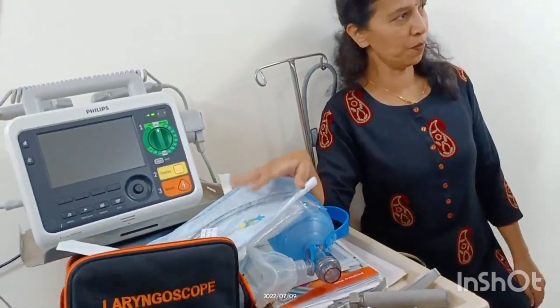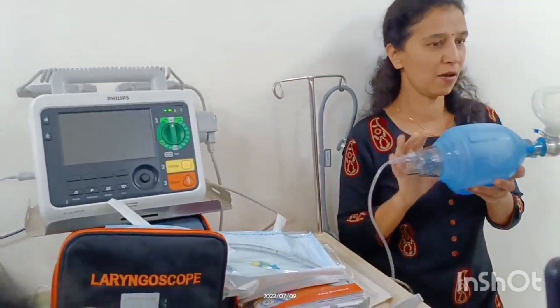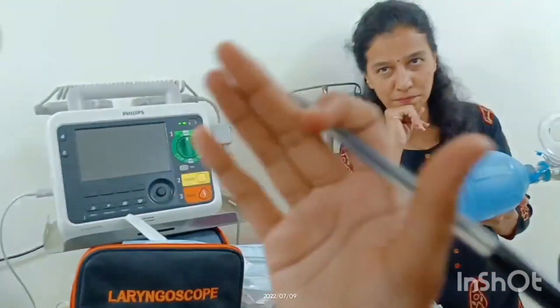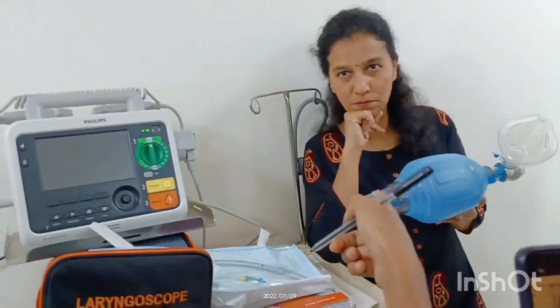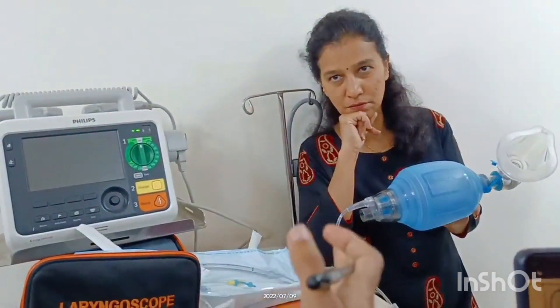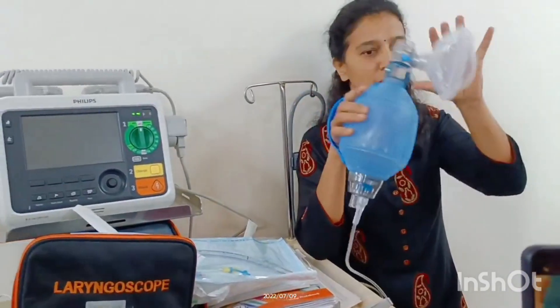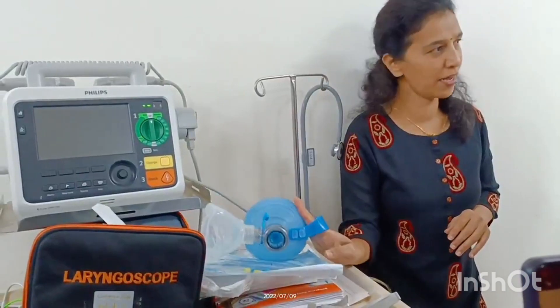For intubation you need the laryngoscope, the tube, and oxygen. The mouthpiece of the ambu bag has to be kept on the patient's face without any gap so that oxygen doesn't escape. You have to keep inflating it so that oxygen circulation is maintained. The handle connects to the bag.